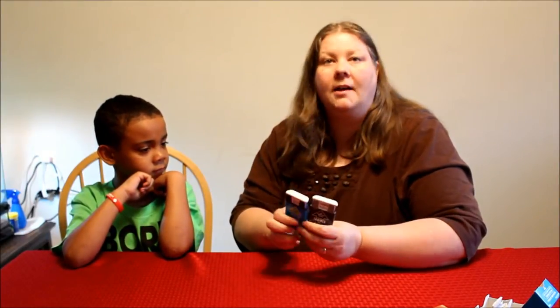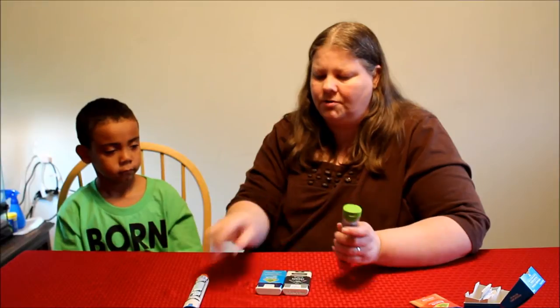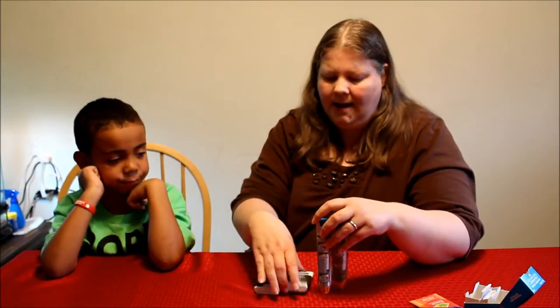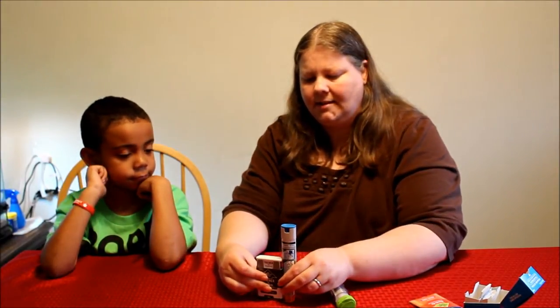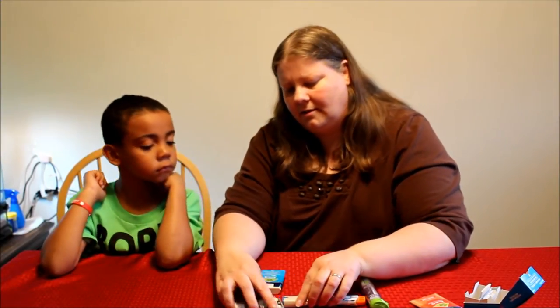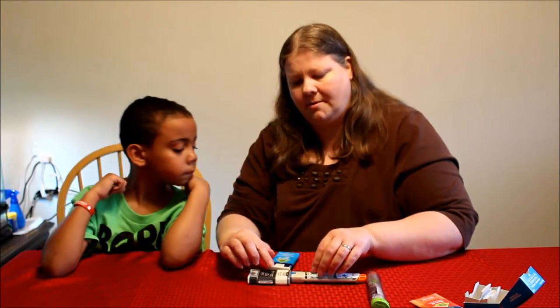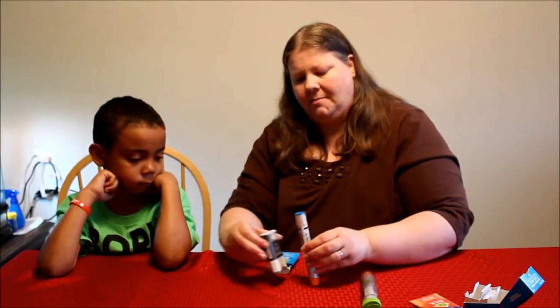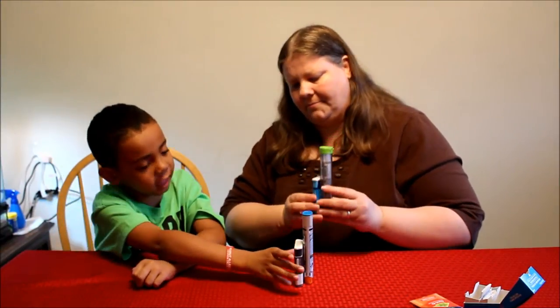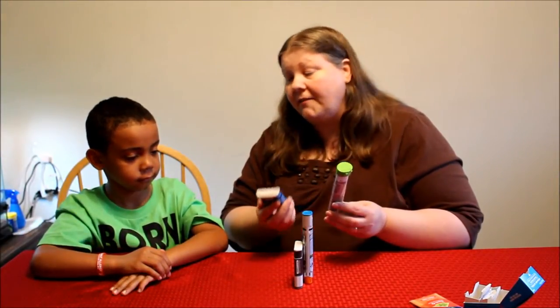You can see they're small. We went ahead and got his EpiPen Juniors for comparison. This is the trainer and this is the EpiPen. The thickness is pretty comparable, but you can see the EpiPen is a little bit thicker — though the AviQ is definitely shorter, which makes a big difference. It could fit right in your pocket, which would be great for teenagers.